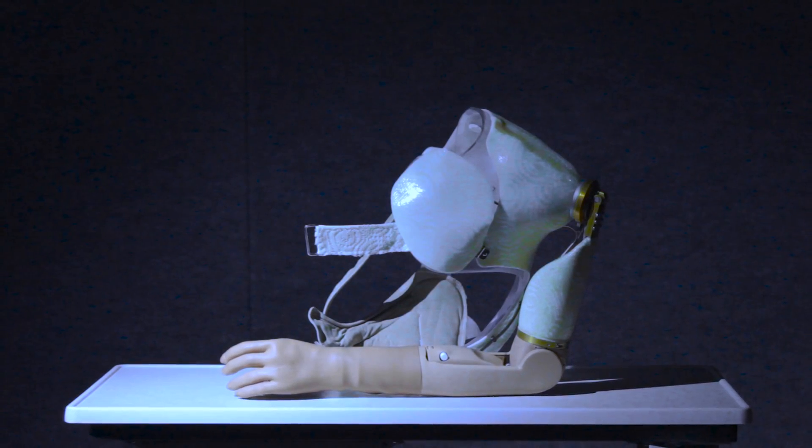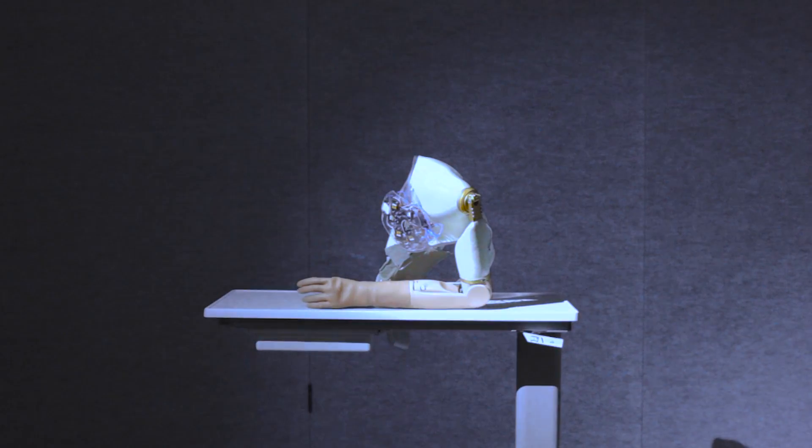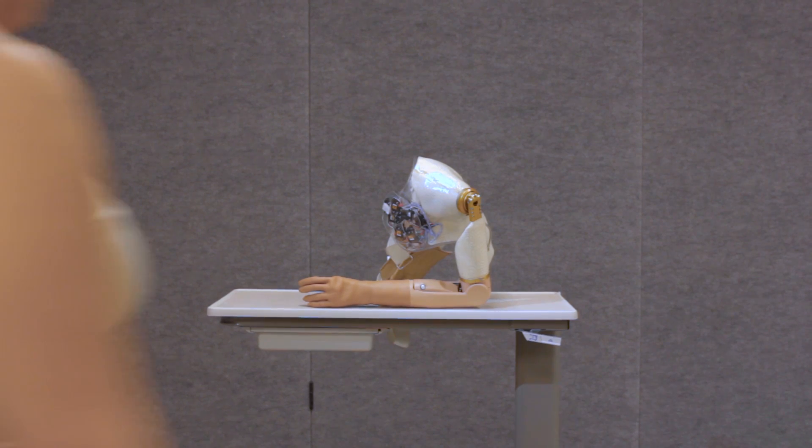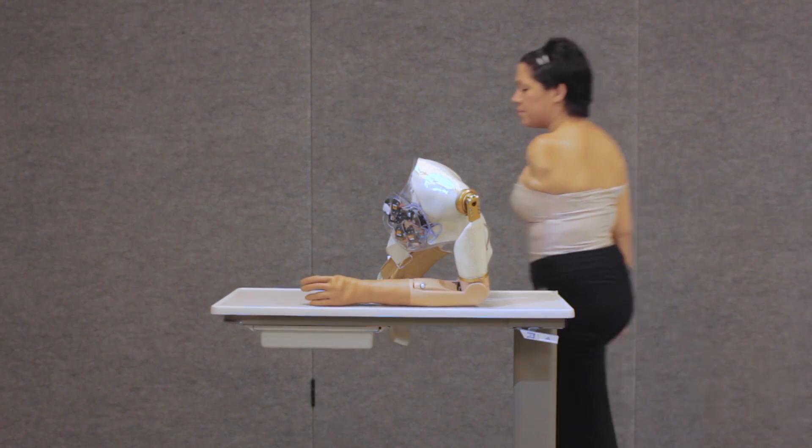Researchers in the laboratory for bionic integration are bringing new life to people with limb loss by using an approach that can provide a renewed sense of touch through robotic arms.